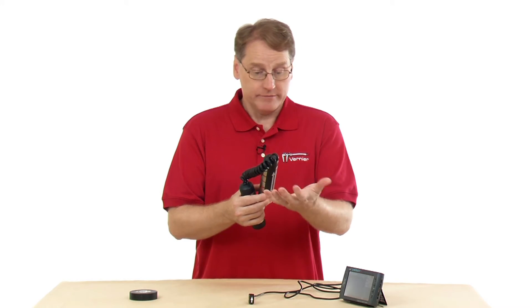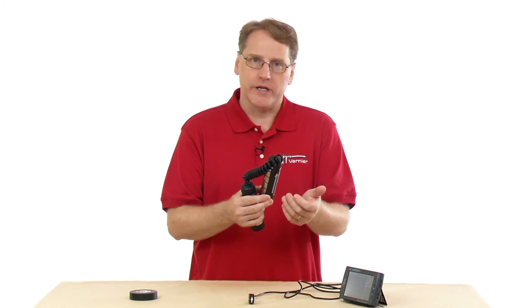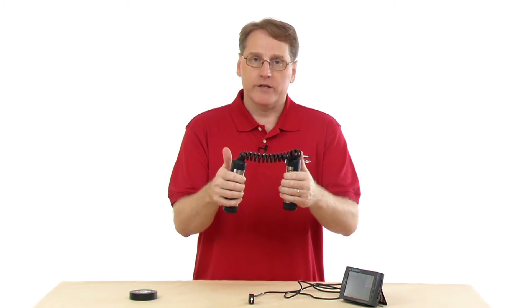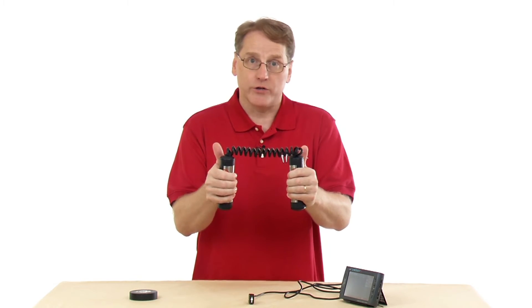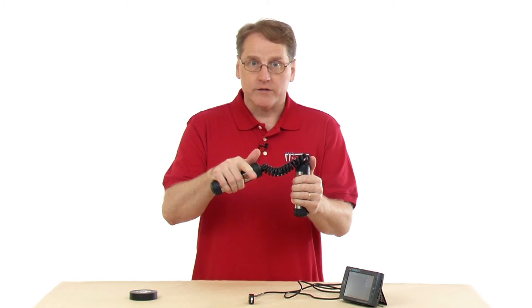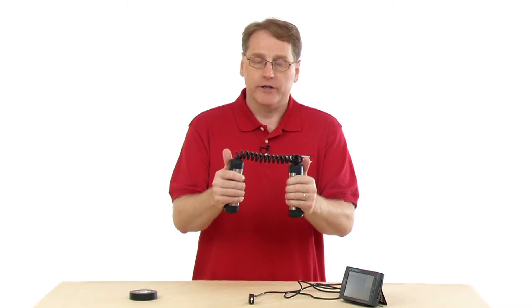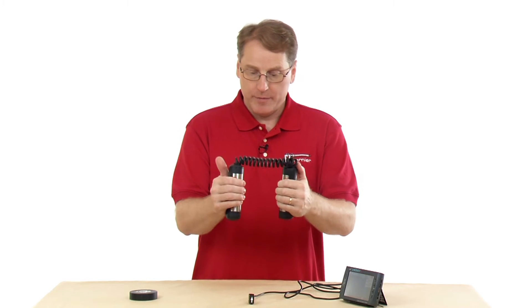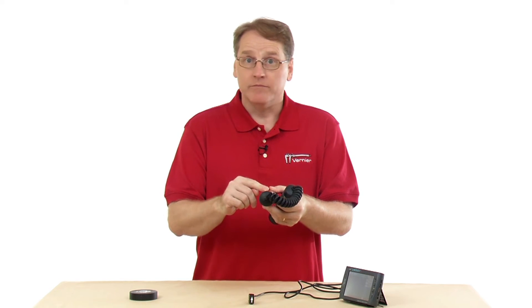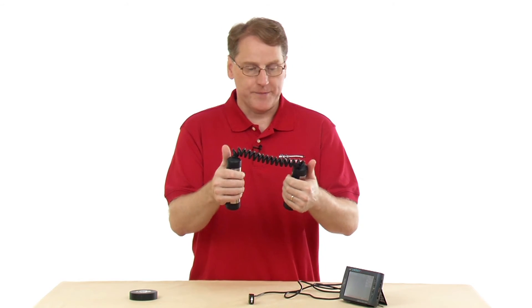Your hands ought to be clean. Sometimes people put lotion on their hands and that can interfere with the sensor's ability to pick up your heart rate. The way this works is it measures the slight change in electrical potential across your hands when your heart beats — you become slightly polarized and the device sees this slight voltage peak and counts the peaks to calculate beats per minute. These sensors can also become dirty, so you may need to clean them to ensure good contact.